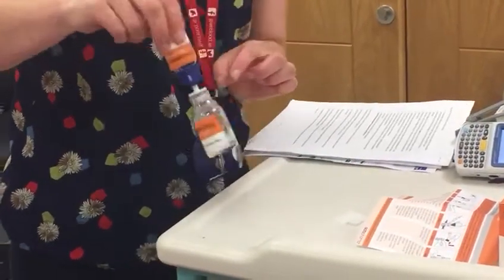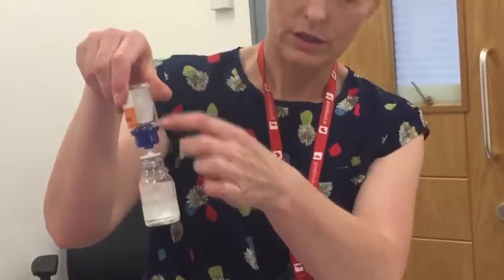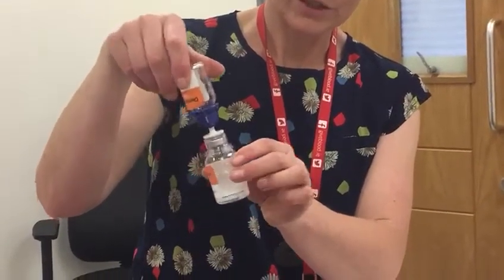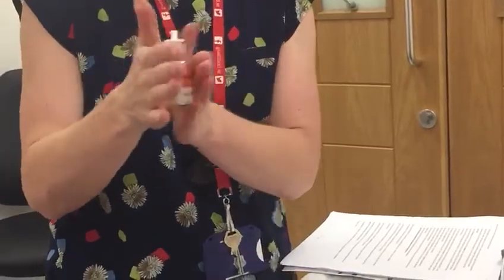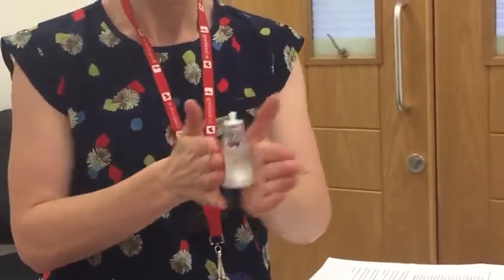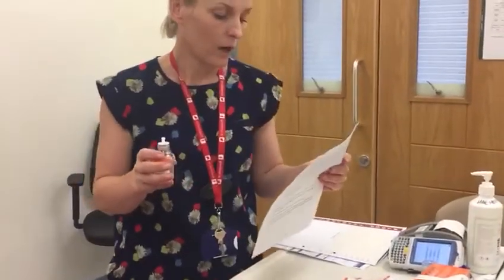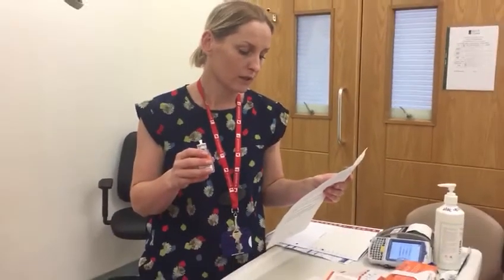As this is a demo pack, there's no powder in. Allow the water to transfer down, and on completion, screw off the top and gently encourage the reconstitution. Do not shake. It will take a number of minutes to reconstitute. However, it will dissolve quickly at room temperature to a colourless and slightly opaque solution.